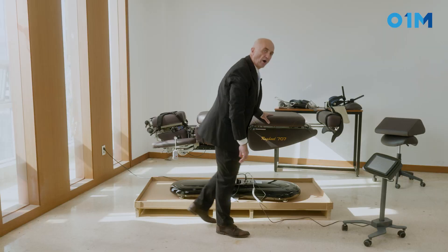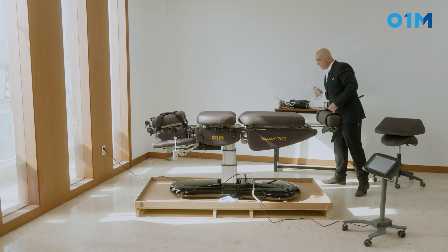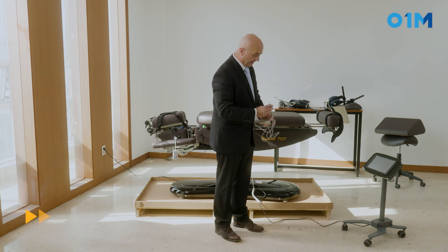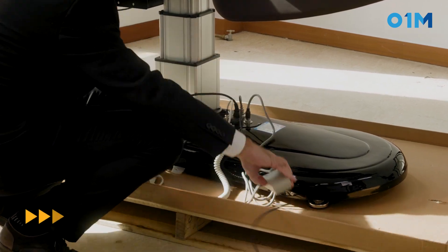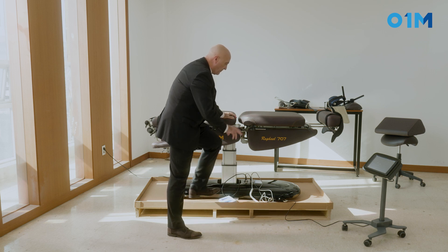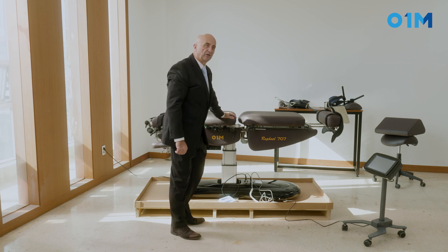That will be our up and down. Finally, we have the drop foot command — the slip-in will go right here. So we have elevation hooked up, the drop hooked up, and the screen hooked up.